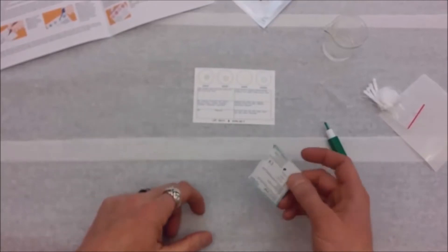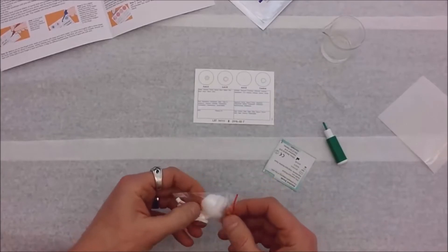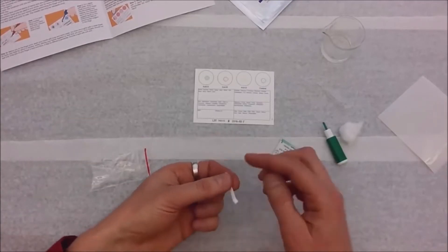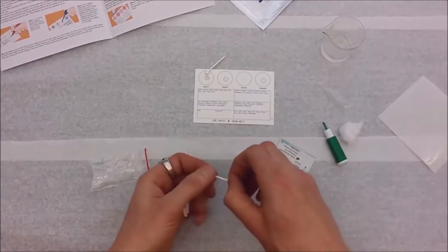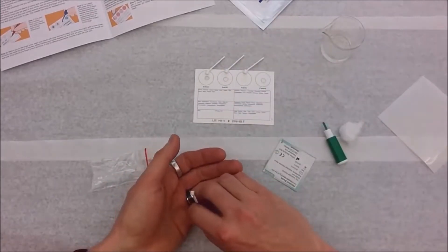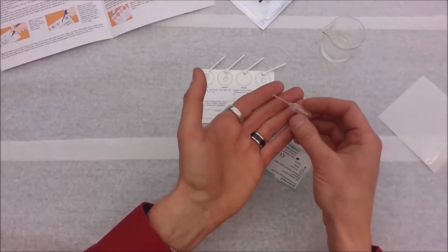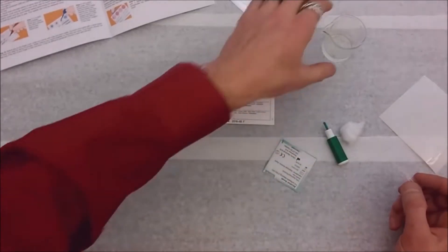The other tools I have here: an alcohol pad to clean off my finger before I poke it, a cotton ball in the plastic bag to stop the bleeding when I'm done, and these little spatulas — I'm going to prep those. There's a spatula for each circle; they'll be used to collect the blood and stir it in circles. There's my spatulas ready to go. And this is a little plastic pipette we use to put a little bit of water on each of the circles.